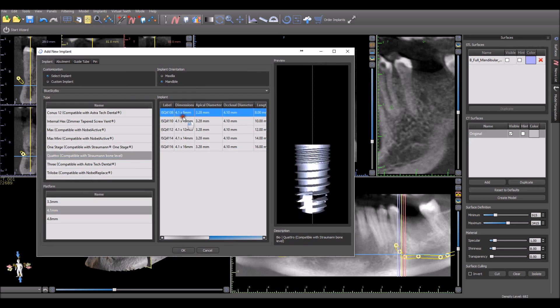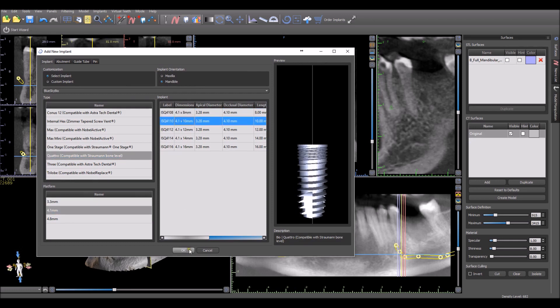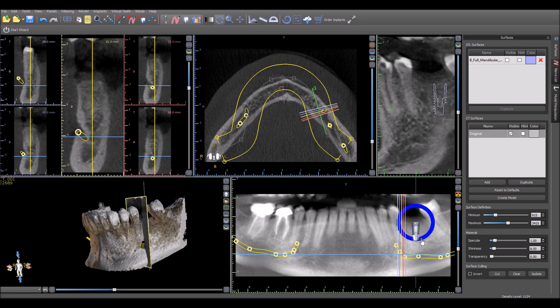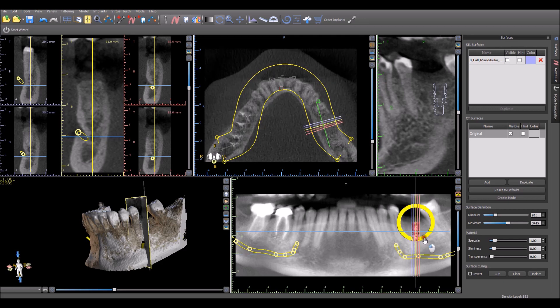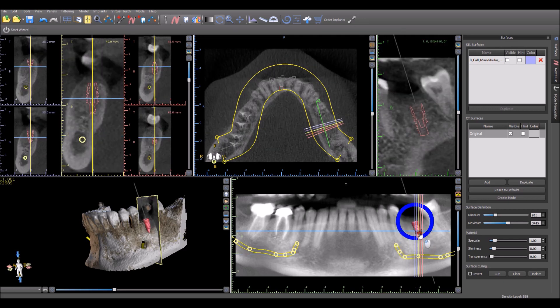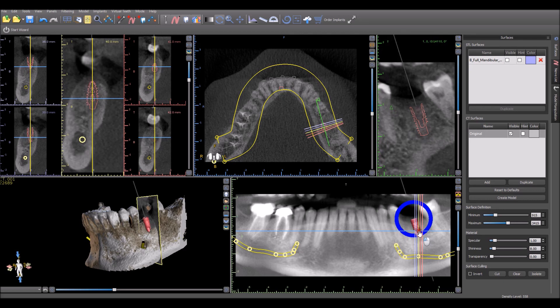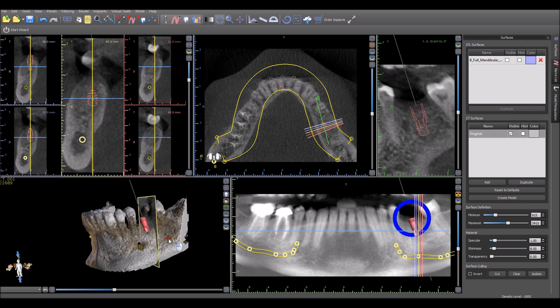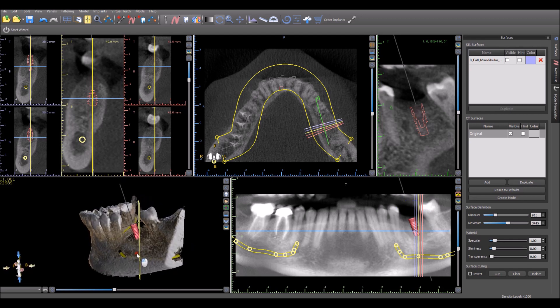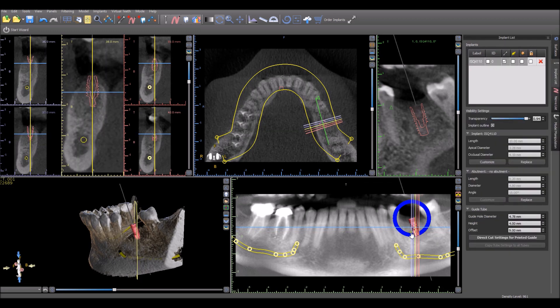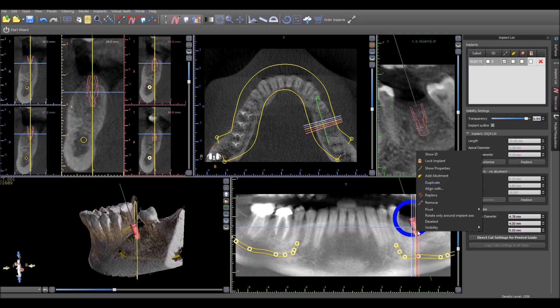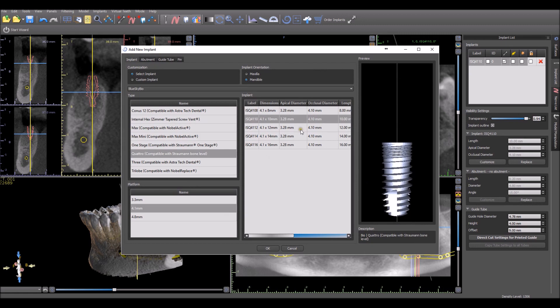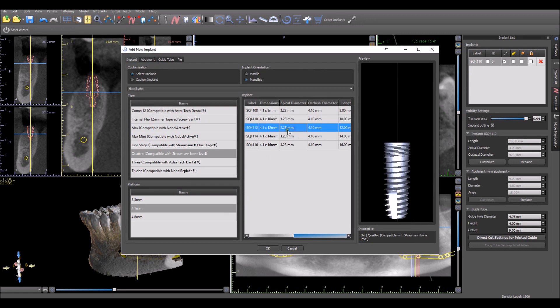Here I'm going to pick one pretty much at random and go ahead and place it into the treatment plan. The implant could be grabbed and dragged in any of the views, including the 3D view. It could be rotated. Here I see that it looks like we could go ahead and add a longer implant. So you could double-click on the implant. It'll bring up the implant panel. Or you could right-click on the implant and choose Replace. There's other functionality here. You could duplicate, you can make parallel implants. But for now, we're just going to replace the implant with one that's a little bit longer.